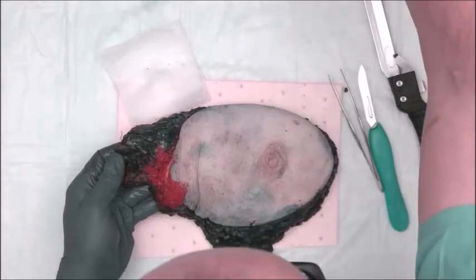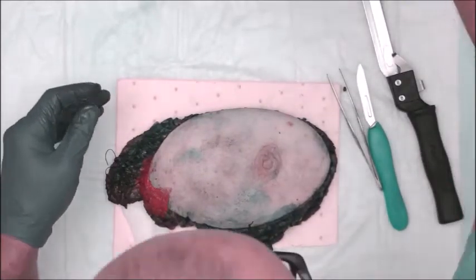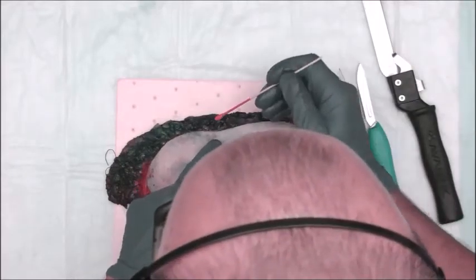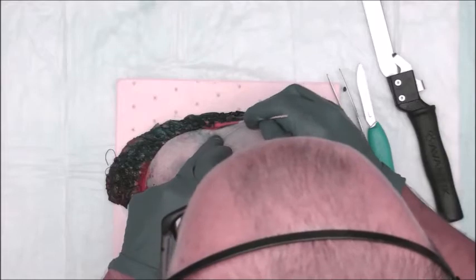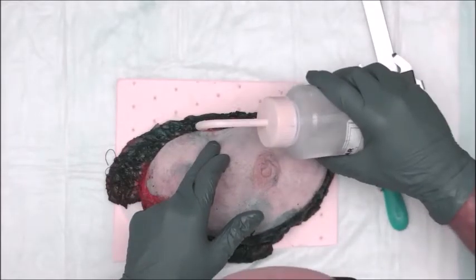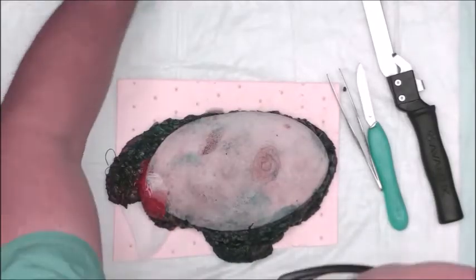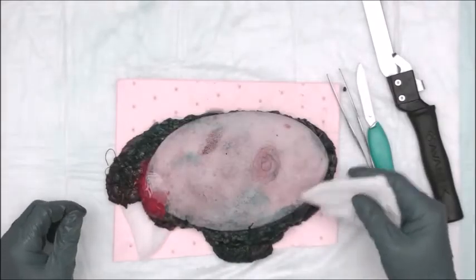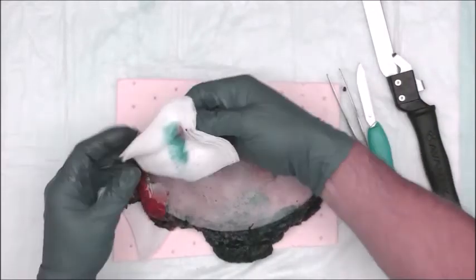And I'm also going to put just a little bit of orange ink at the peripheral skin, soft tissue, or breast margin where that nevus was at. Okay? A little bit of orange ink there. Once again, add a little bit of vinegar. Let it act as a mordant. Okay?